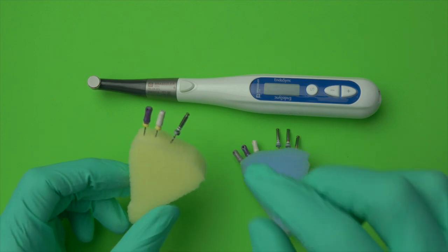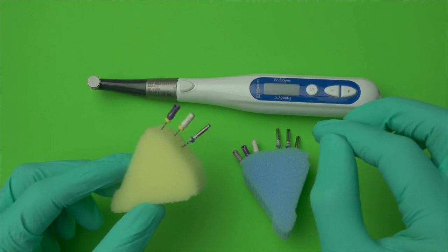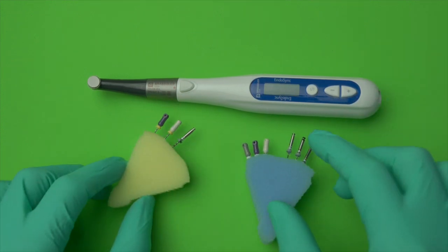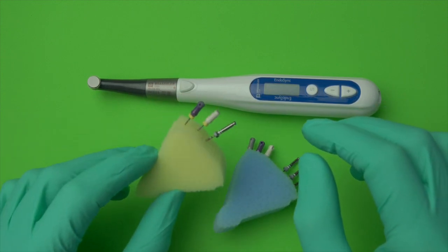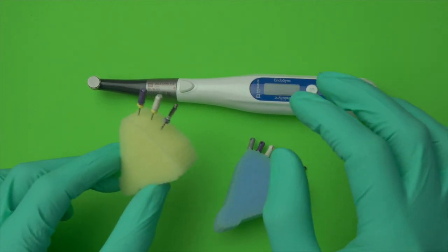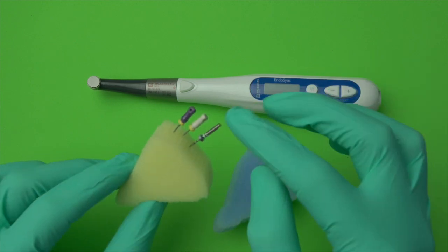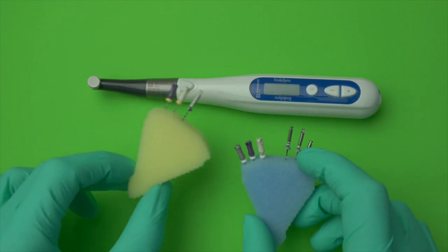Basic cases are those where a size 15 hand file can easily get to the apex — primarily your anterior and premolar cases. Molar cases are for the most part advanced cases, because there's always one tough canal, like an MB2, that makes it difficult for a 15 to get down easily. So in our office, the assistant puts a 25mm setup of size 8 and 10 hand files and an expediter in a color-coded sponge that differentiates basic from advanced.